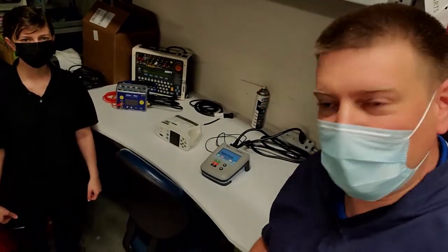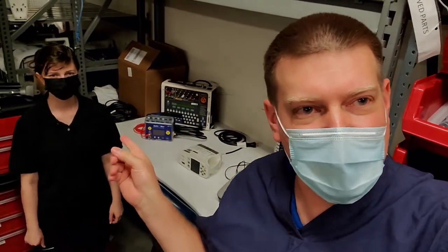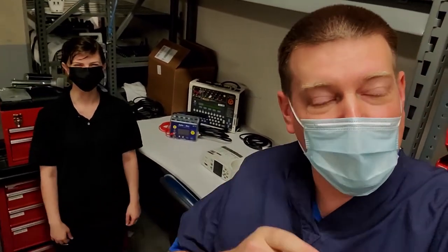Hey guys, welcome back to Better Biomed. Today we are going to take a look at the SafeTest 50. Now this is Alyssa, this is my protege, a Biomed 1, pretty close to being just fresh out of school.